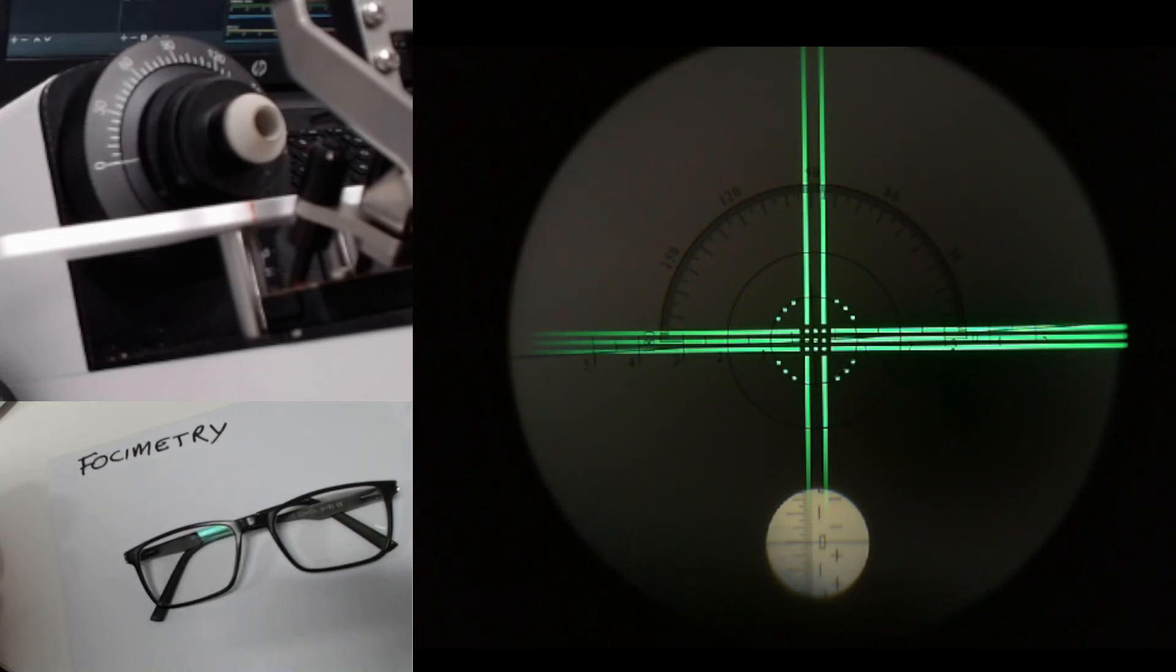We are going to talk about the way that I would use the focimeter and everybody will tell you a slightly different technique. The important thing is that you find a technique that works for you and that is accurate. That's the key thing.